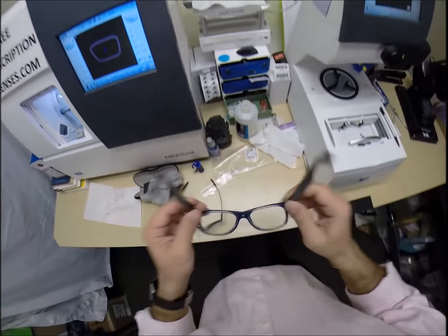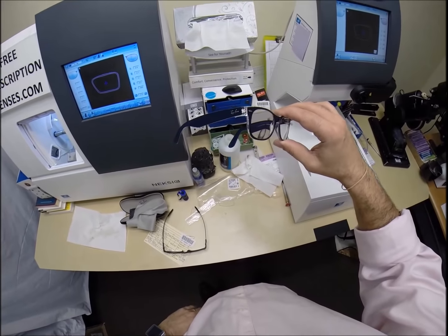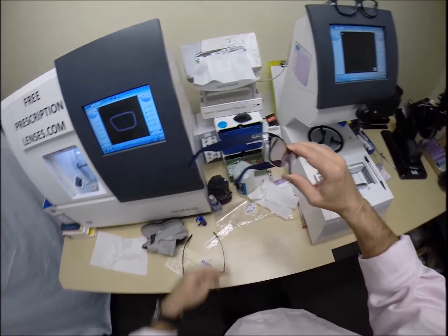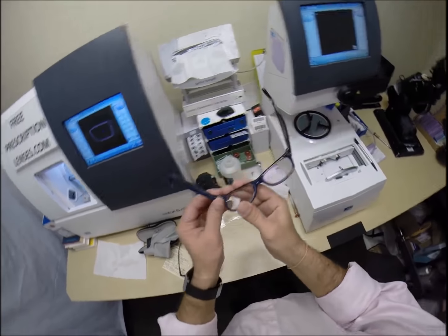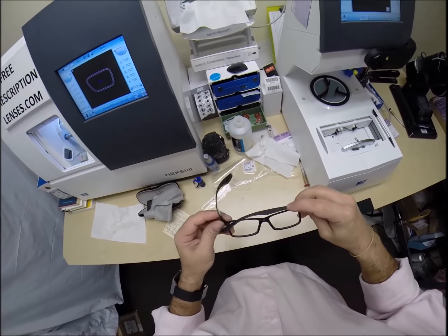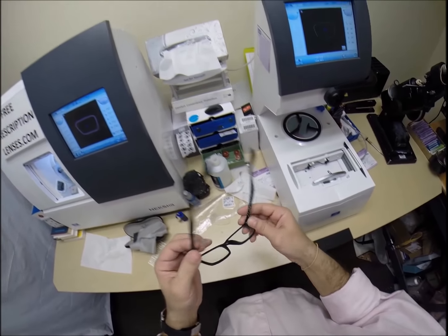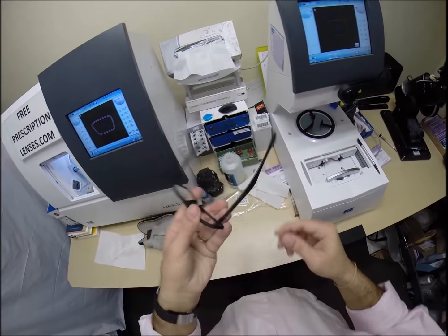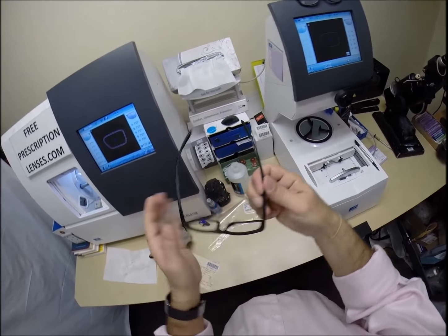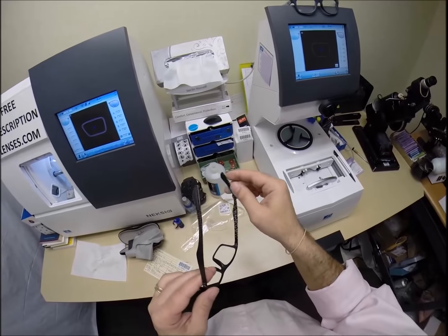But I'm going to get these in standard alignment first. Also known as a three point stance. The three points are one, two and the bottom of the frame being three. I set them down on the counter and press down. There is no wobble. When I say wobble. I'm part of that 80%. When I put mine down they wobble on the counter. But they sit level on me. Today, I'm wearing my customary. My bread and butter Ray-Ban 2132 New Wayfarer. Size 52 in color 6053, which is the blue crystal. I normally try and match my shirt. But I don't have a pink frame. So today, I'm just going to have to clash. I'm going to put mine back on so I can see what I'm doing. Press down on the opposite side. There is no wobble. Make sure each temple overlaps perfectly. And they do. And then neither one is askew like that.